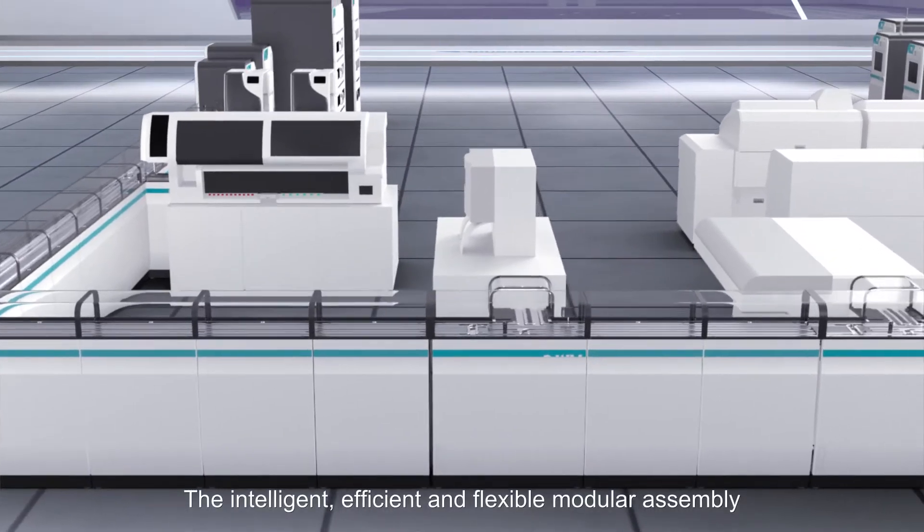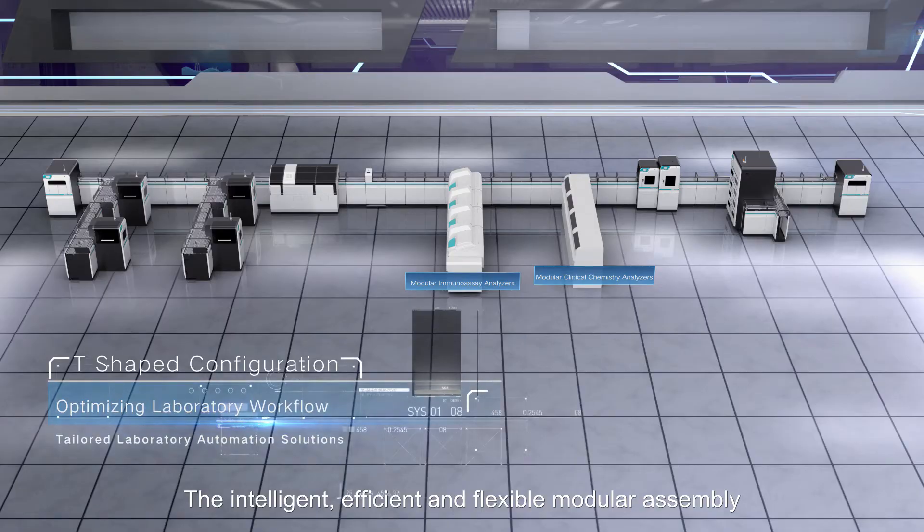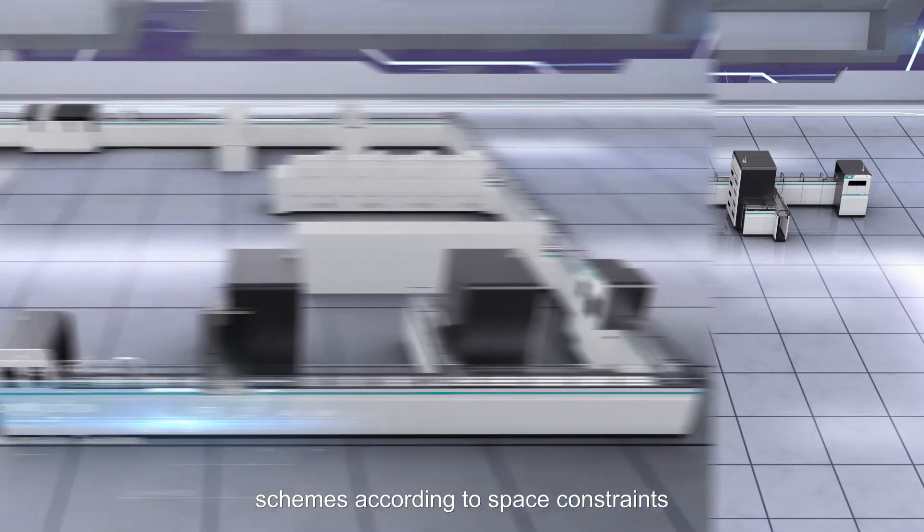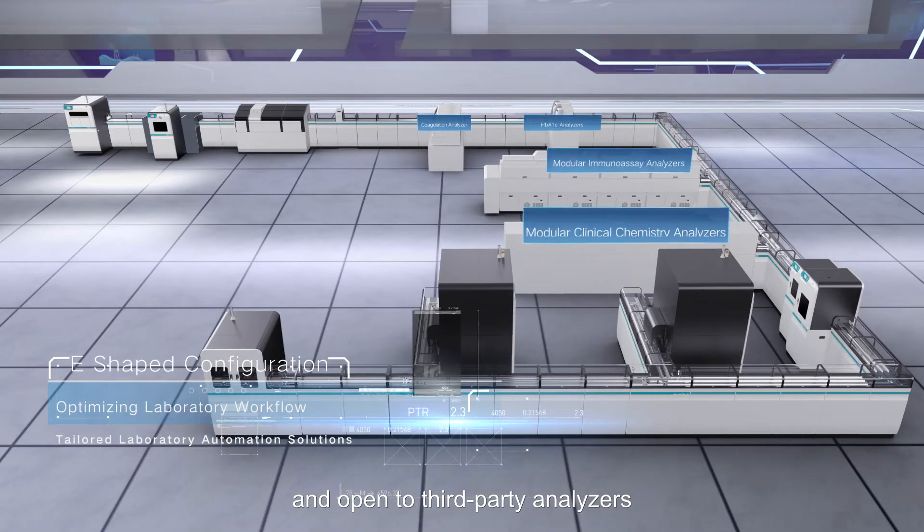The intelligent, efficient and flexible modular assembly enables execution of different design schemes according to space constraints and is open to third-party analyzers.